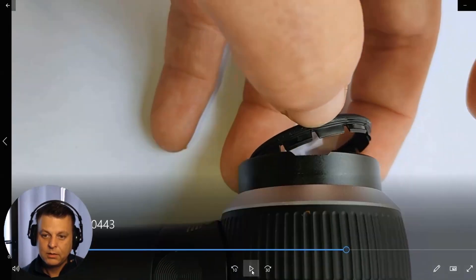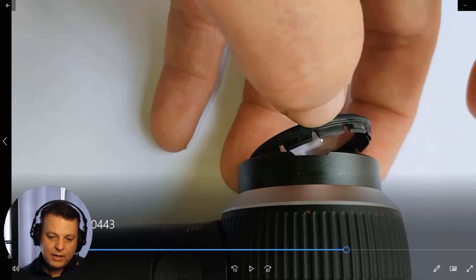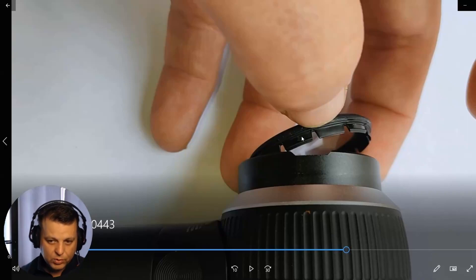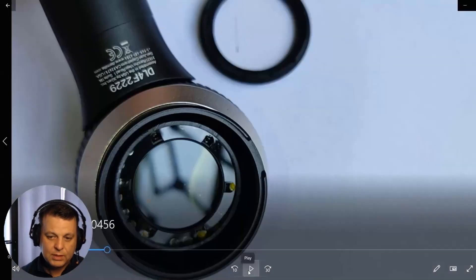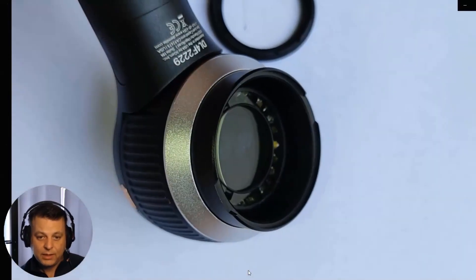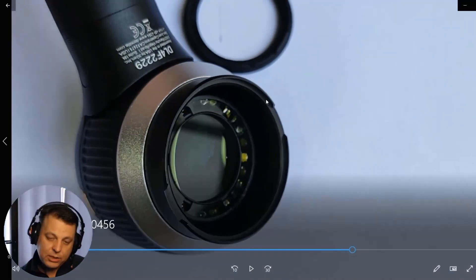Like that. Okay, so I would do that, and then just simply remove the broken faceplate. On the inside, this area here, you know, the faceplate is there to provide two things.